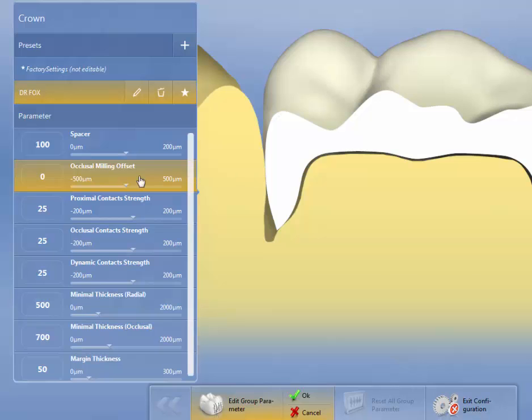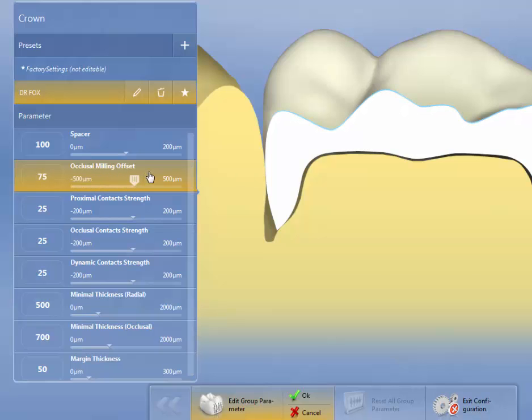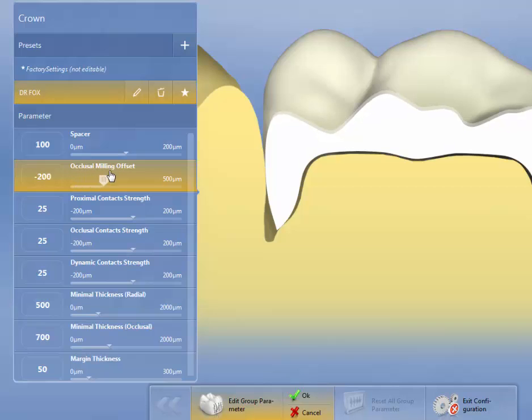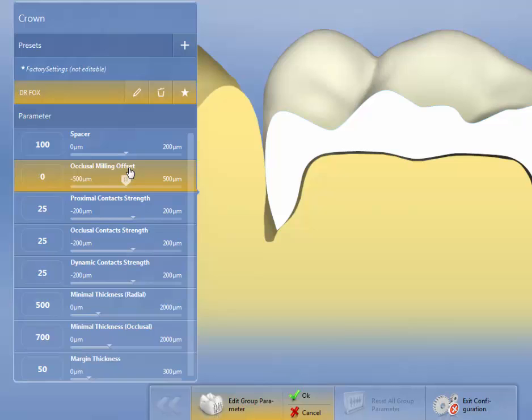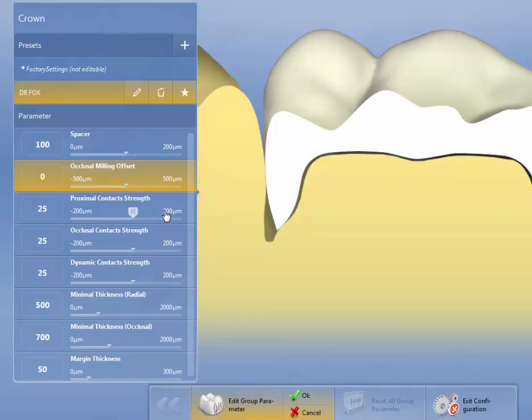Occlusal milling offset. What this does is it removes or adds porcelain in the milling chamber, but it really doesn't tell you that it's doing it. This was more for the red camera because of the noise that it has. So the recommendations for this is to set it at zero, and this comes from one of the developers of the software.